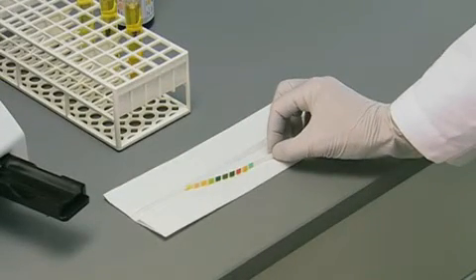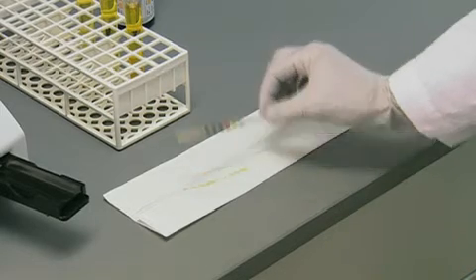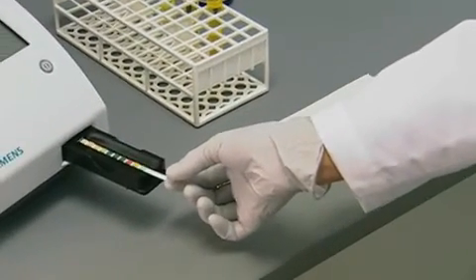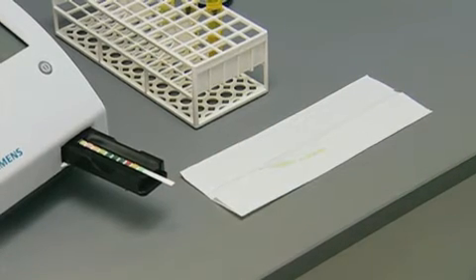Touch the edge of the strip against a paper towel to blot any excess urine. With the test pads facing up, place the reagent strip in the channel of the table and slide it to the end.